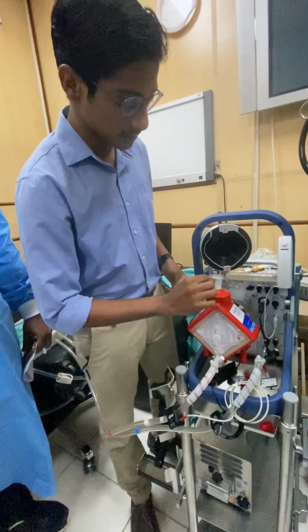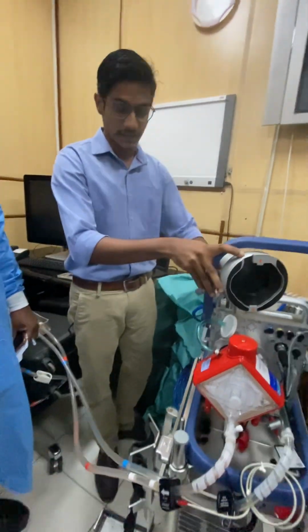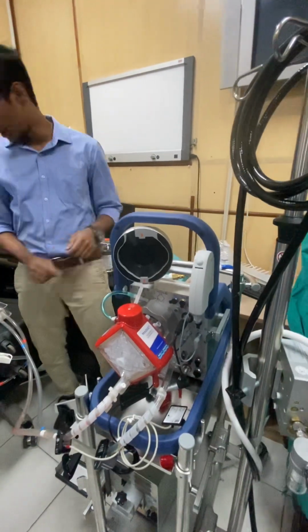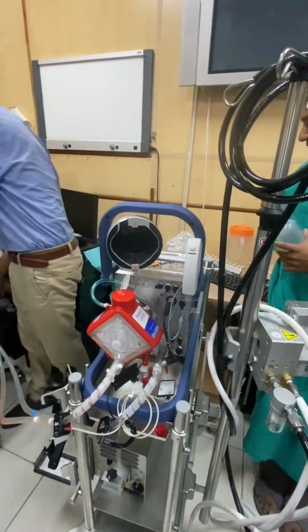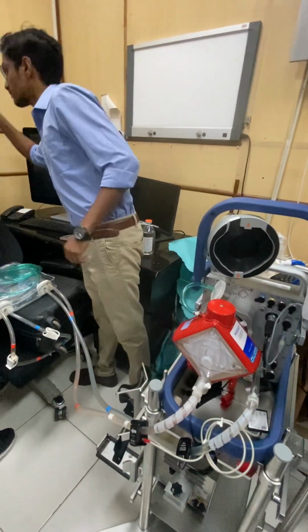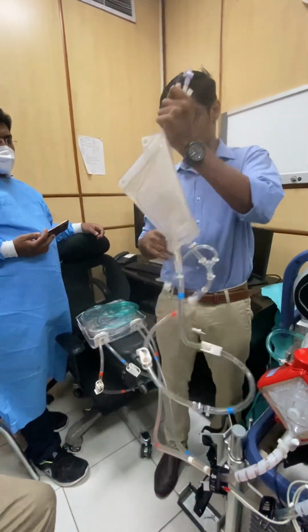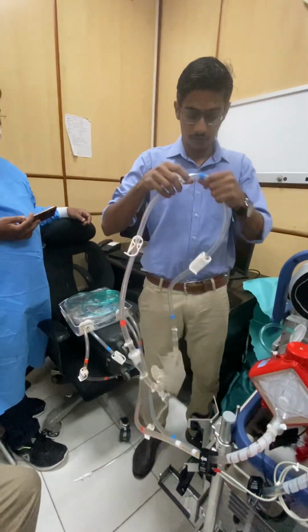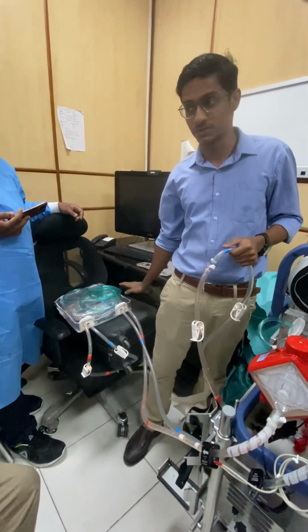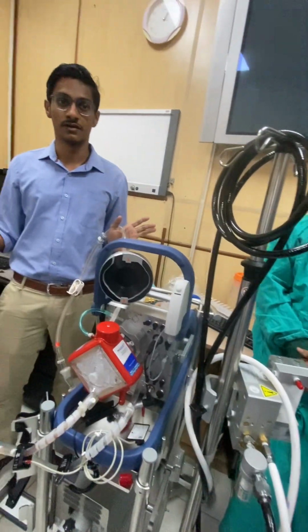So we have connected this. We have removed this port because we are going to prime. Now we have checked the battery backup. For priming, we will need priming fluid. Okay, we want. Now this is the bag which is used for priming. Part of the kit. ये भी इसके साथ ही आता है। Everything will come as a kit. Now for ease of carrying, I have brought it in a suitcase. In our next detailed training, I will be bringing it just like how you will get it.